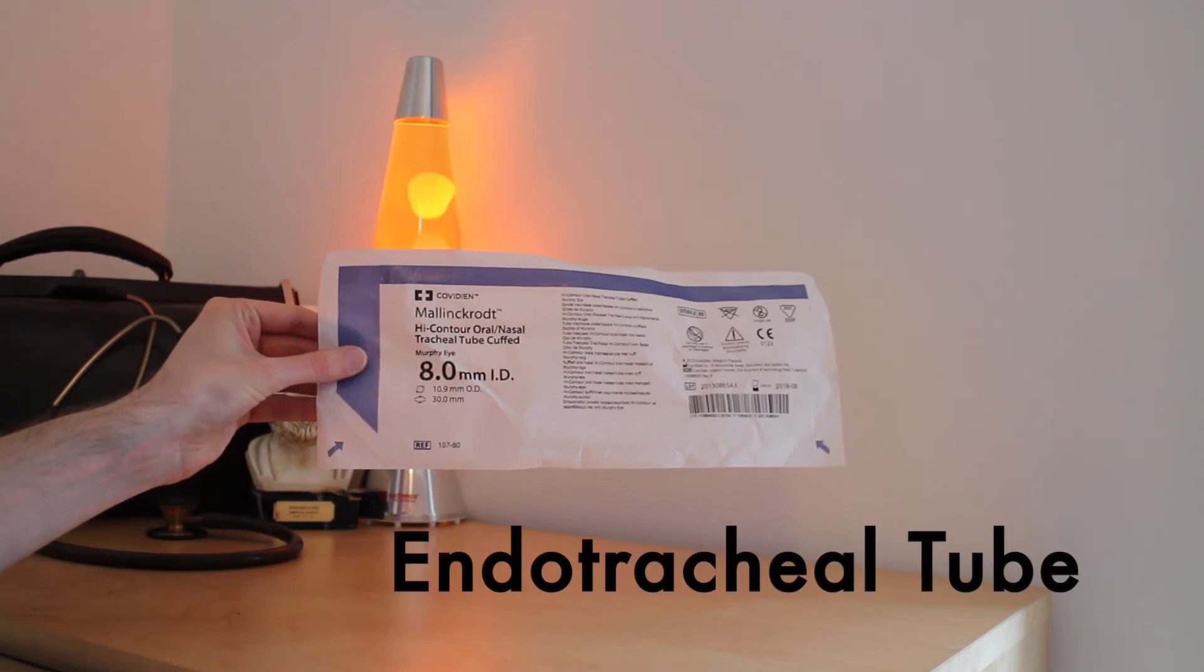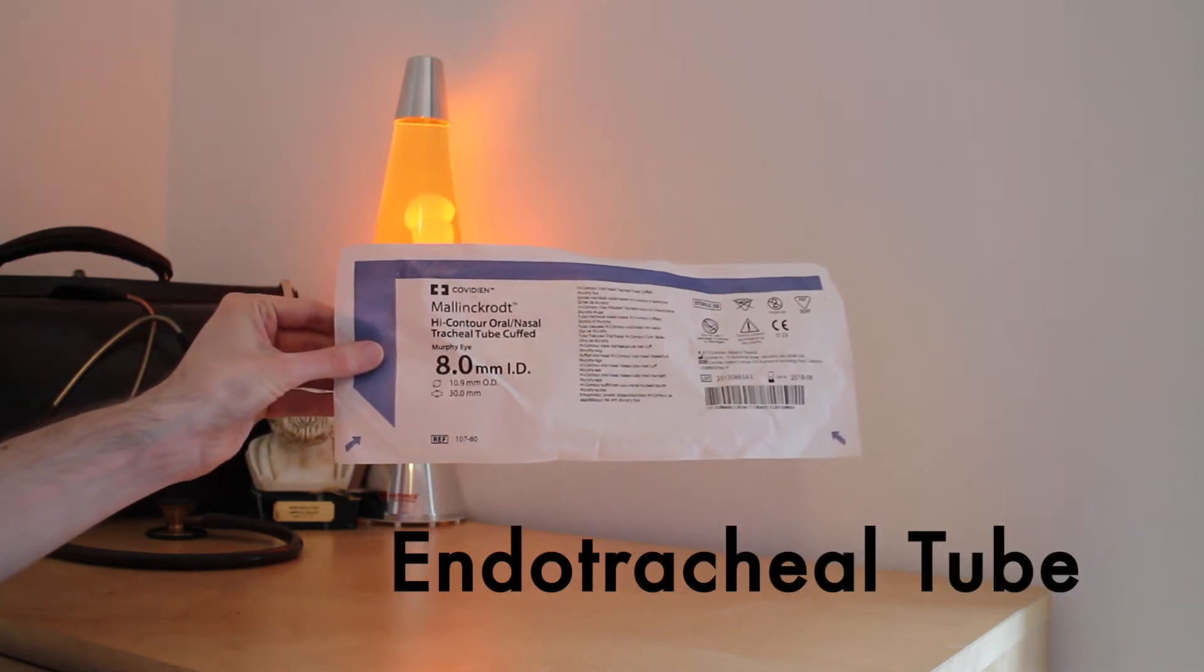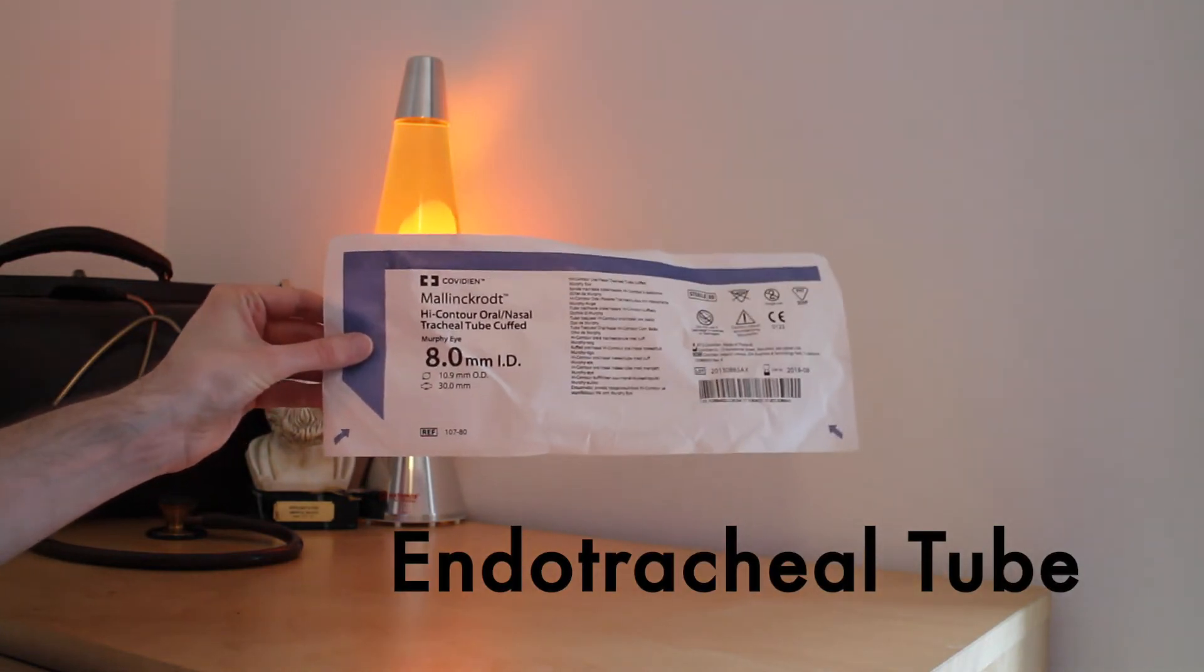This is an endotracheal tube, or ET tube. It comes in a sterile bag.